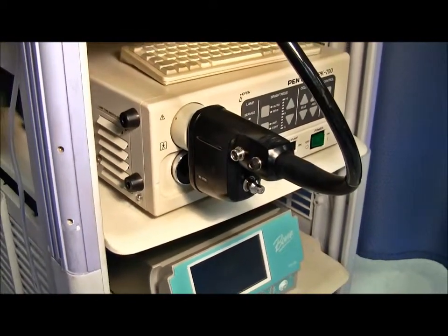With the Pentax scope, to use our single-use connector, you must first remove the black water jet channel adapter.